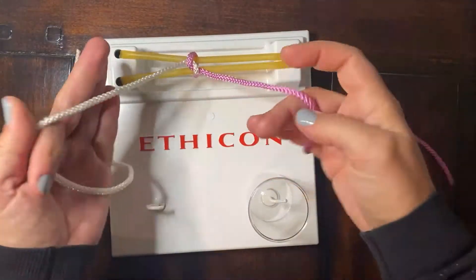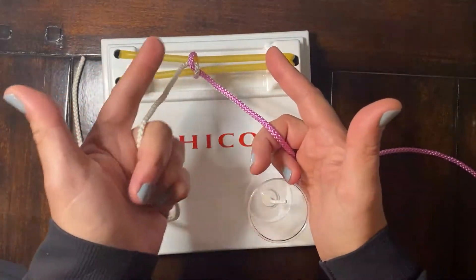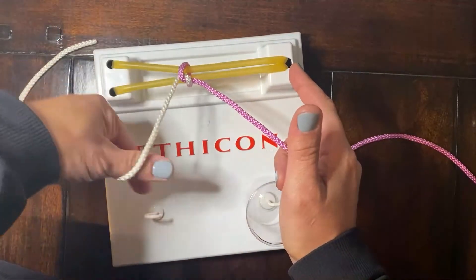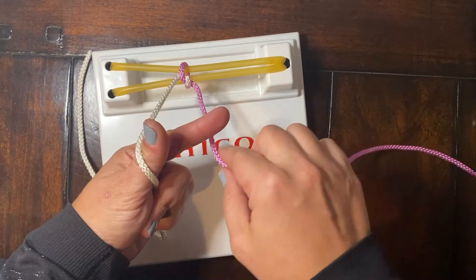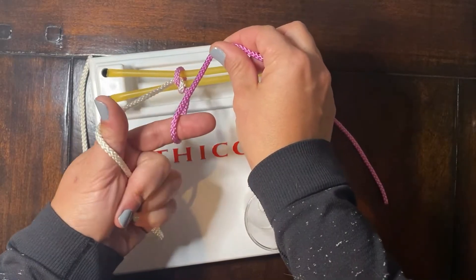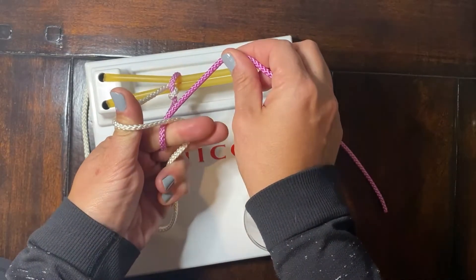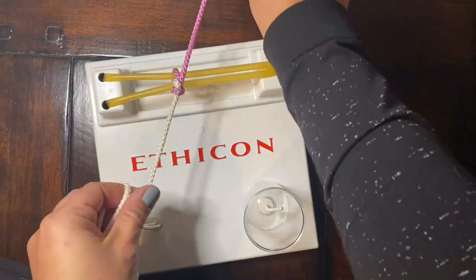Second step of the series. Pistol grip. This time, instead of a J, we'll make an L. That L is going to come over the suture and all the way under, so we have a little pincer. We're going to wrap the needle end over the index finger — it's the only finger we have to work. That index finger will come again over purple, under the white, and rotate, so the free end now comes towards you.